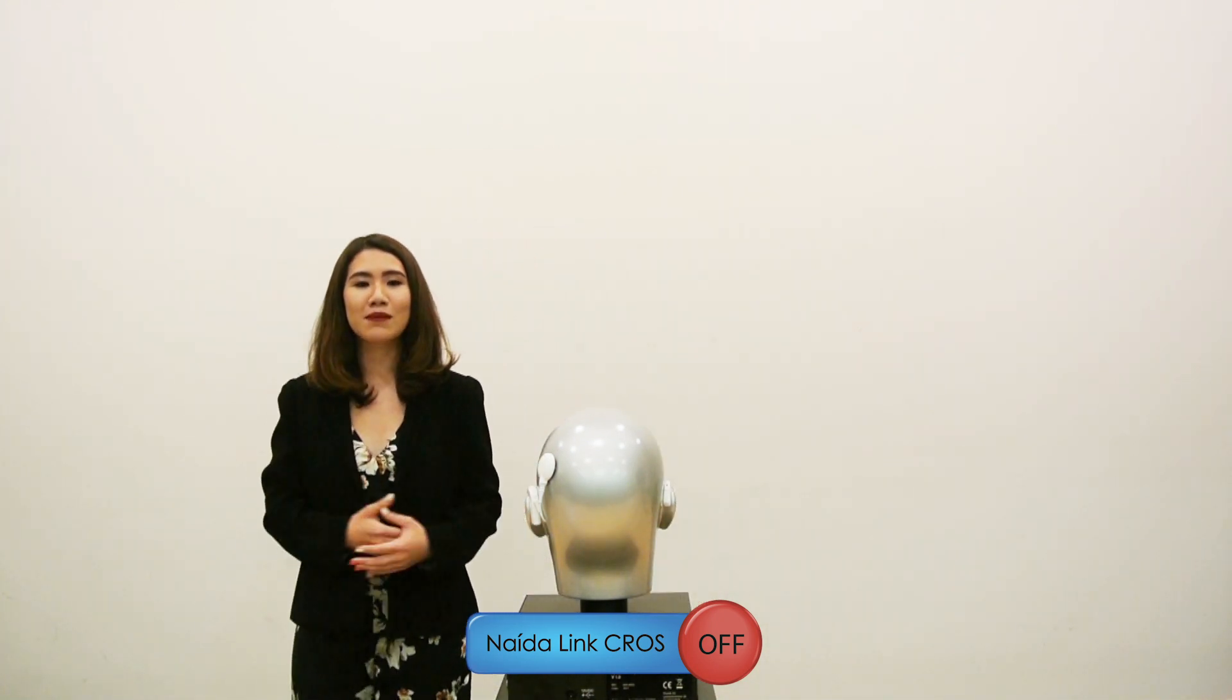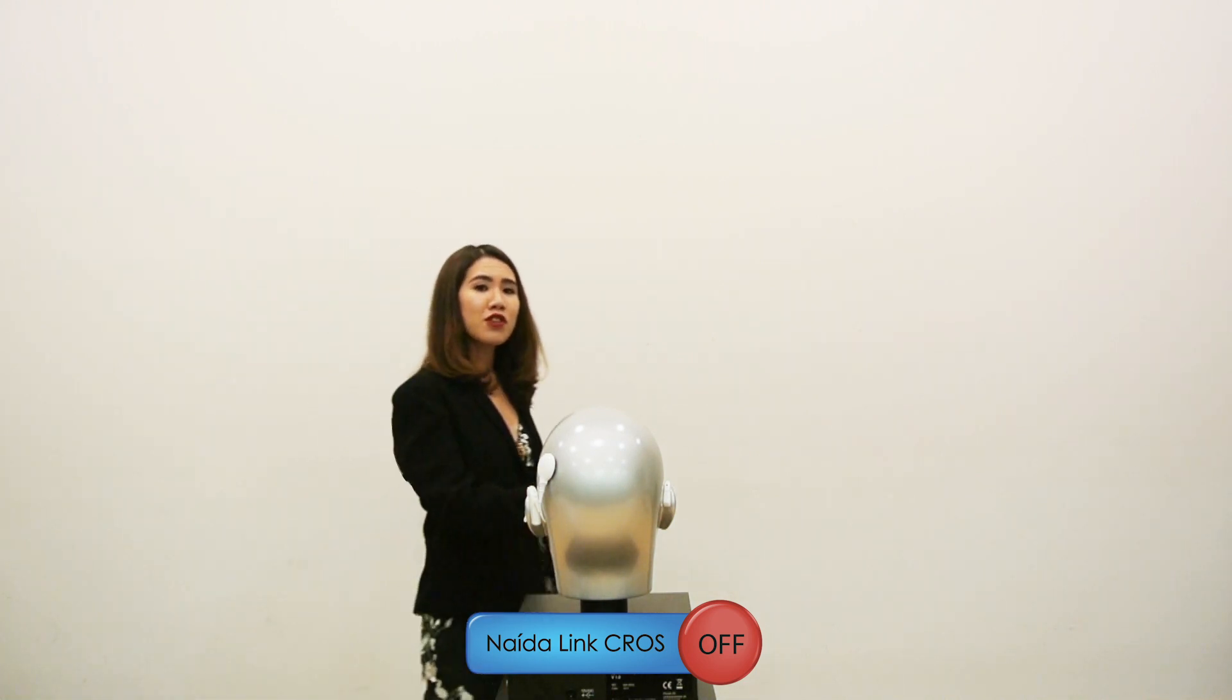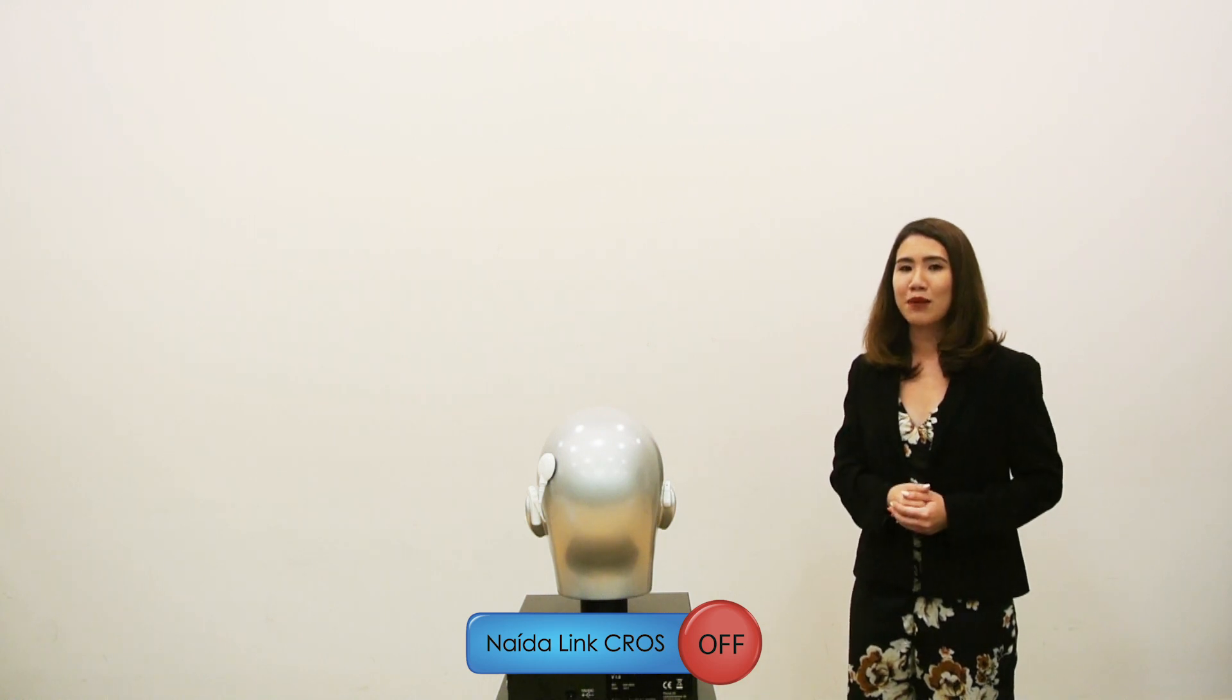So, as long as I'm standing on the cochlear implant side, it is still easy for you to hear me. But when I move over to the non-hearing side, it becomes harder for you to hear my voice.